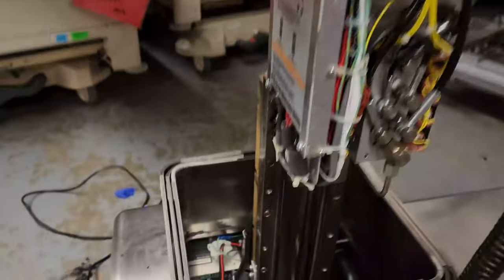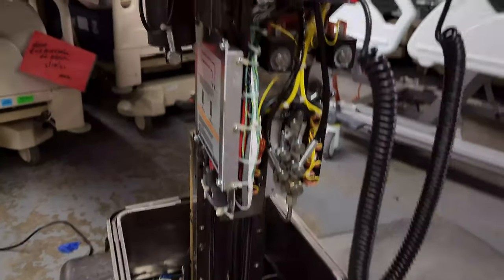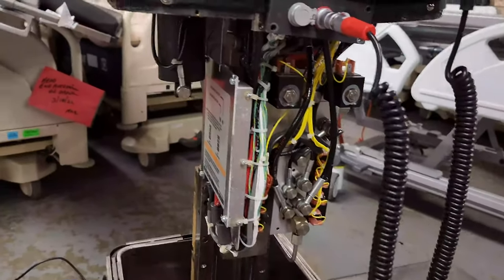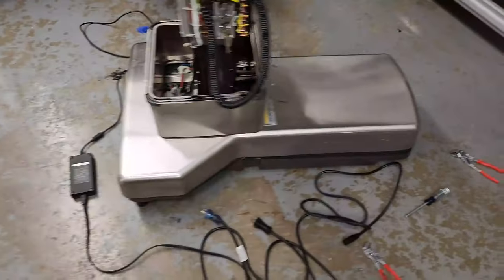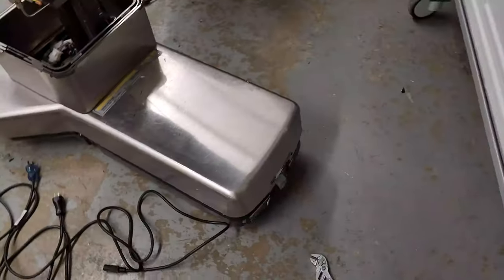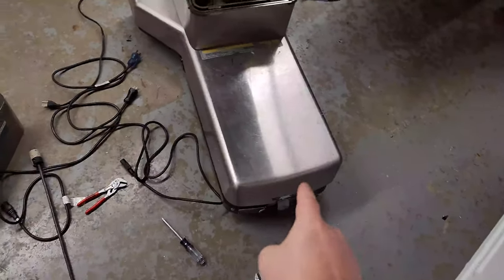Make sure everything is good to go. The hand control works beautifully. We went down into the base and inspected the batteries — they will need to be changed out soon. That returns this table to functioning order. Also check the AC plate because these are known for being defective, especially with loose power cords.